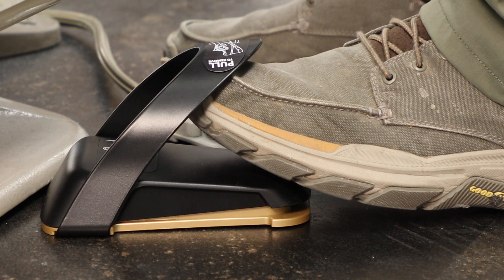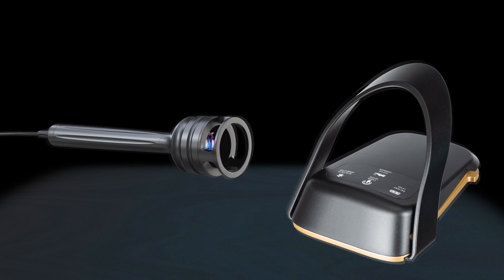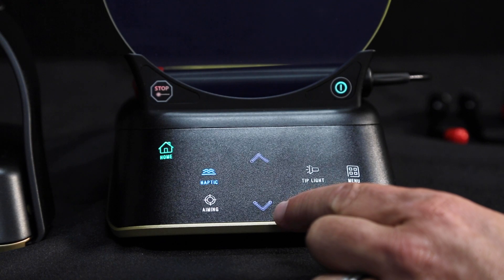As you press the pedal, you will feel a buzzing sensation to the foot while the activation pedal is depressed. The handpiece is also equipped with haptic feedback in PBM mode to provide the patient with the same sensation, letting them know when the treatment cycle has started and ended. To adjust intensities between low, medium, high, and off, touch the arrows up and down.